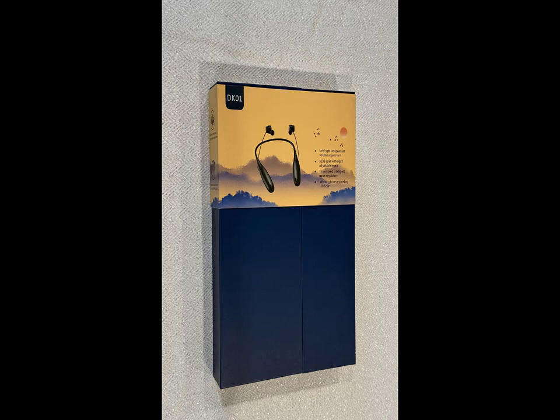Overall, it has a great sound amplification. Intelligent noise reduction function can automatically filter external noise, allowing you to hear sounds more clearly and accurately, helping people with hearing loss hear clearly so they can return to a normal life. This will make a great gift for a friend or loved one, elderly or hearing impaired.